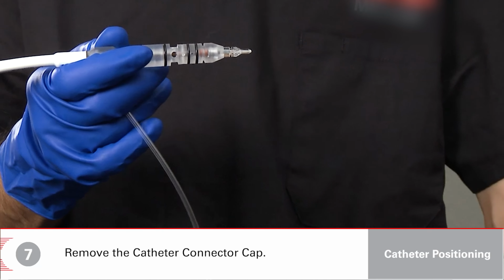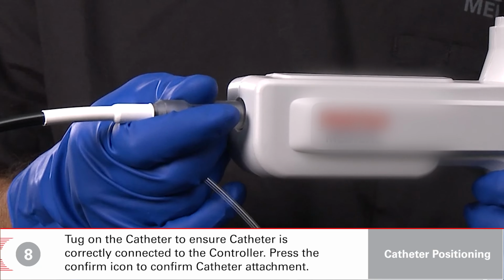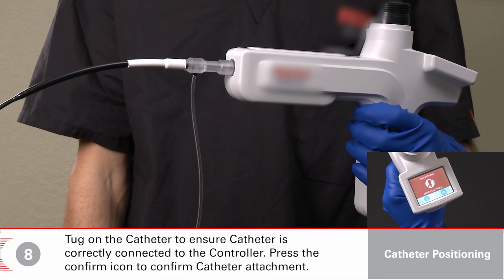Remove the catheter connector cap. Insert the catheter connector into the controller. There will be an audible click. Tug on the catheter to ensure catheter is correctly connected to the controller. Press the Confirm icon to confirm catheter attachment.